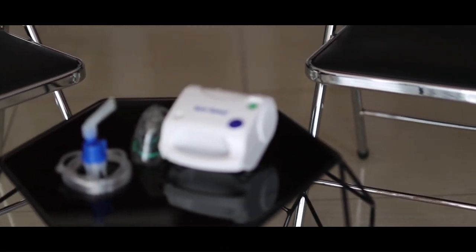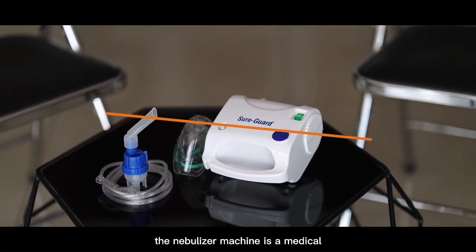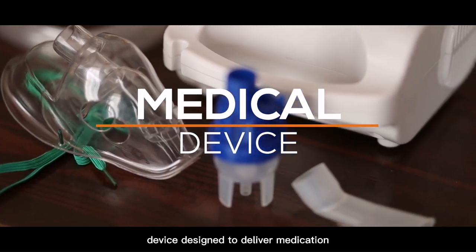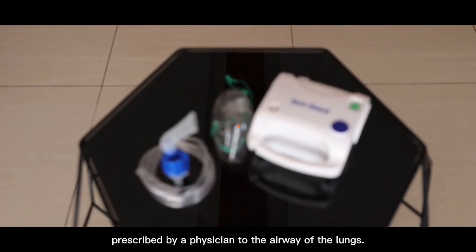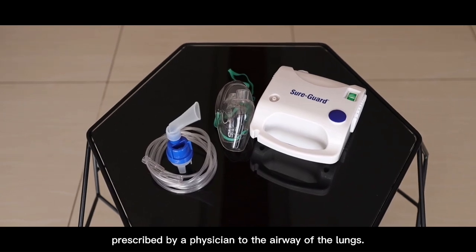Nebulizer Machine. The nebulizer machine is a medical device designed to deliver medication prescribed by a physician to the airway of the lungs.